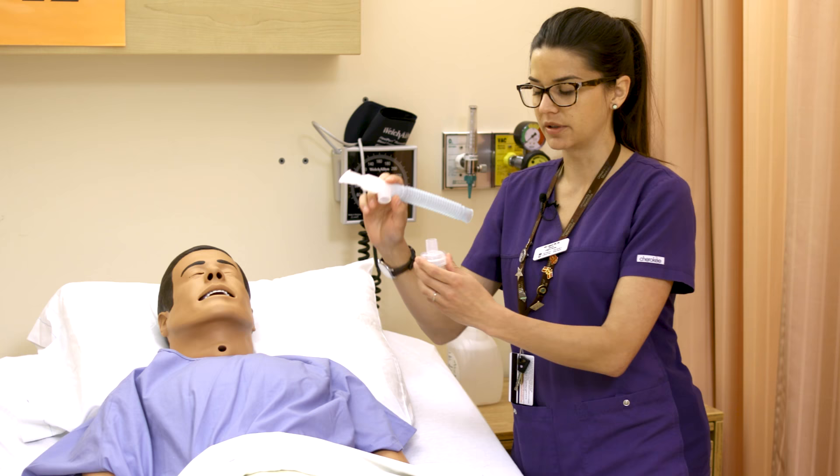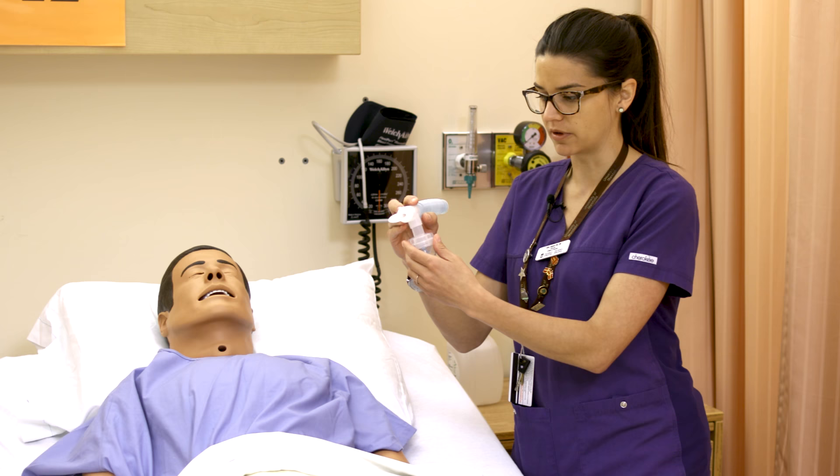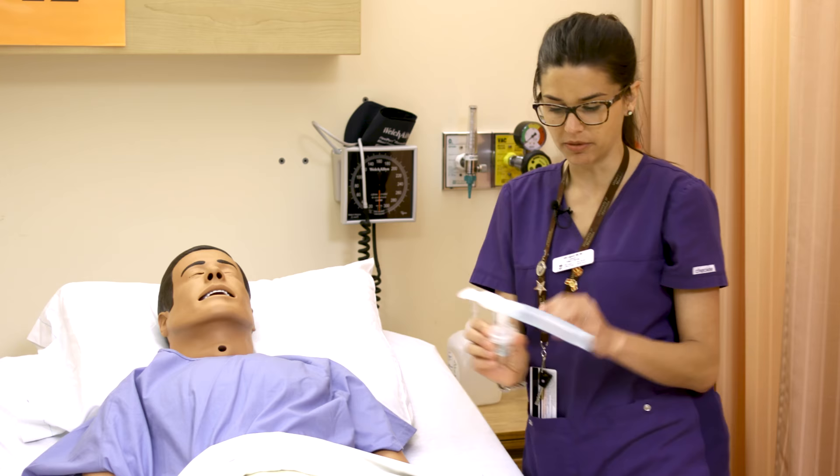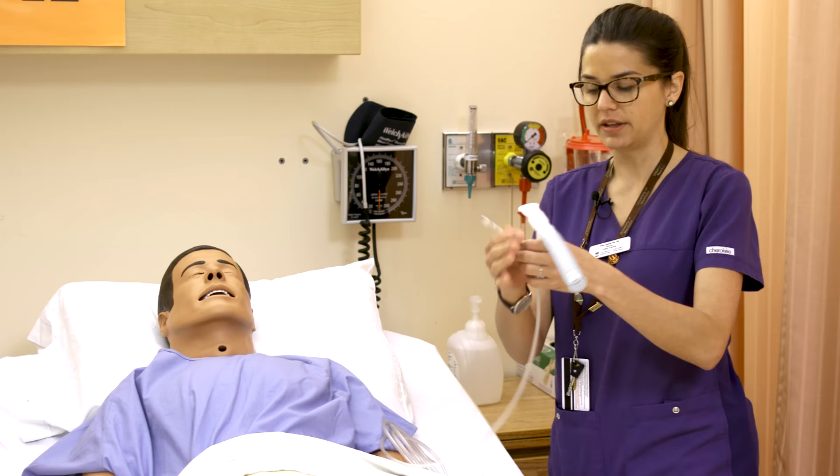There is also a slightly different method using a mouthpiece system. This comes in three pieces and you just put it together — it's pretty straightforward. This is the mouthpiece, and this is the part where extra air gets exhaled or pushed out. That is the mouthpiece version of delivery.